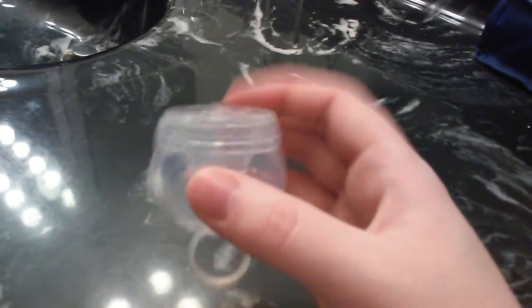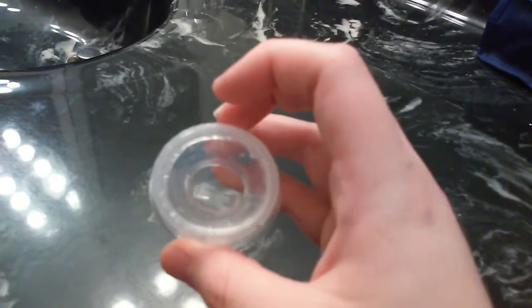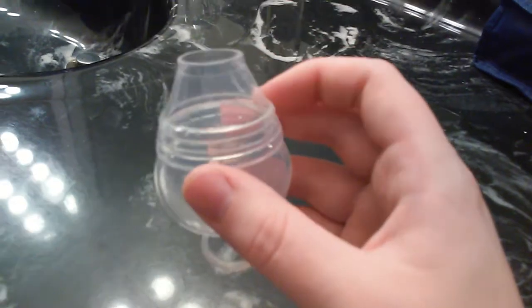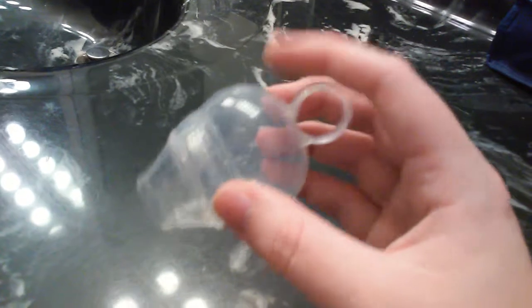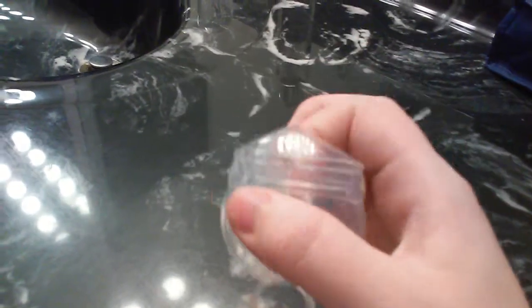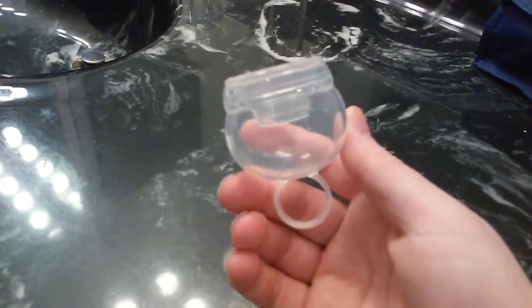One very unique feature of this cup is that it has a no-spill rim. As you can see the no-spill rim pulls out so that you can easily empty any waste out without getting messy. Also when you remove this cup it prevents it from leaking so that there's no leakage and it's a neater cup to remove.